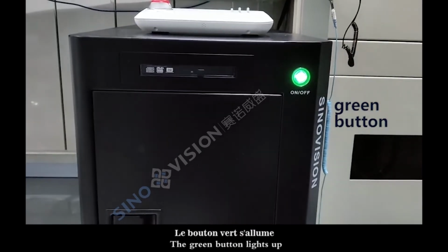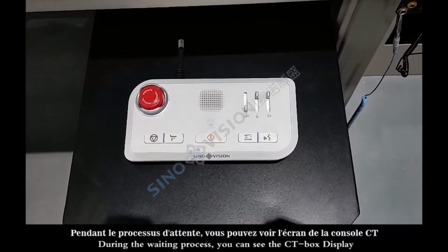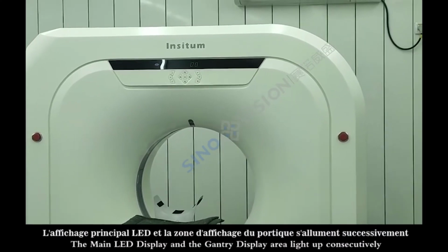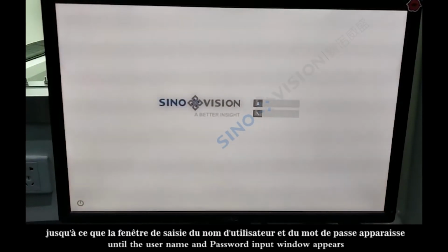The green button lights up. During the waiting process, you can see the CT box display, the main LED display, and the gantry display area light up consecutively until the username and password input window appears.